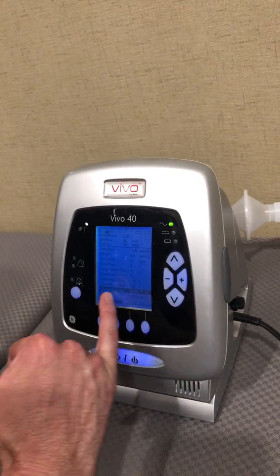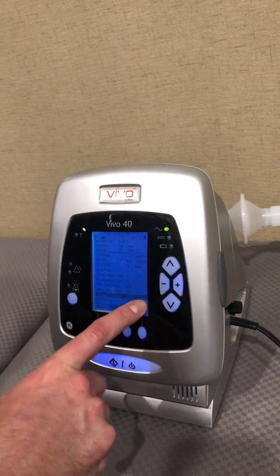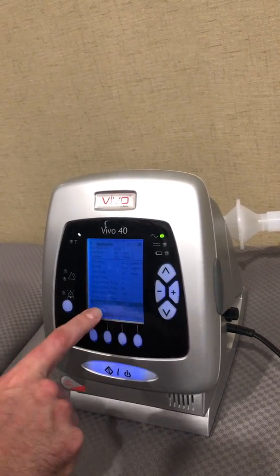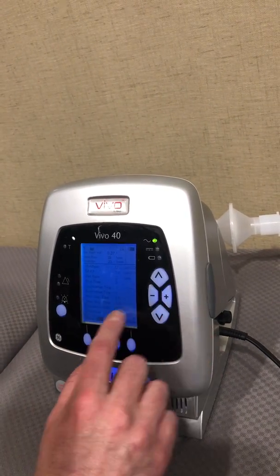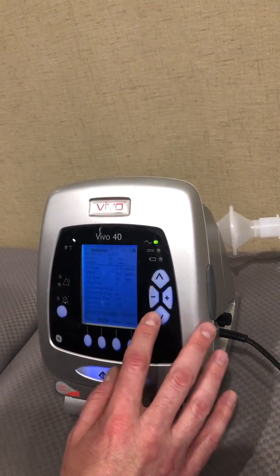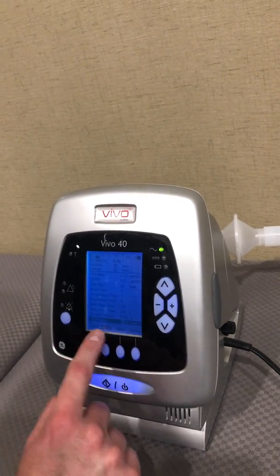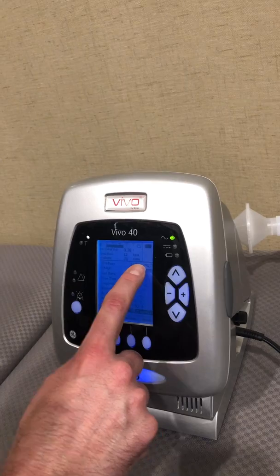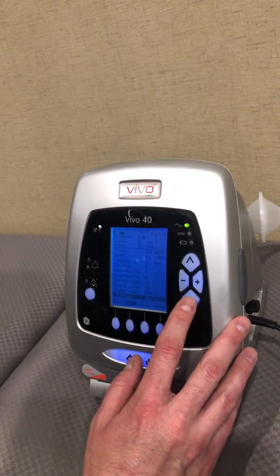Our target volume is set at 500. You'll notice this is in liters, not milliliters, so 0.50 is going to be 500 milliliters — I'm going to leave it there. My IPAP max is set at 25. Remember, my IPAP min is 12. I'm going to leave that there as well.